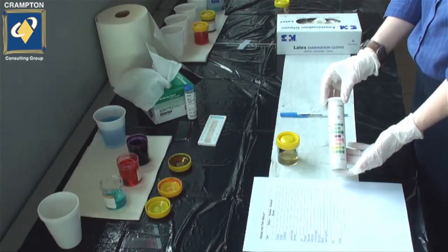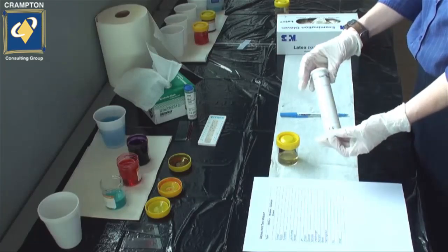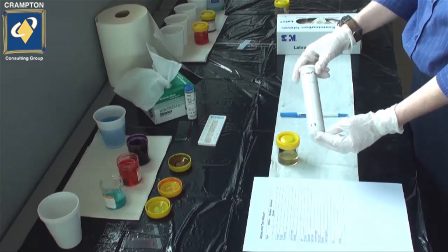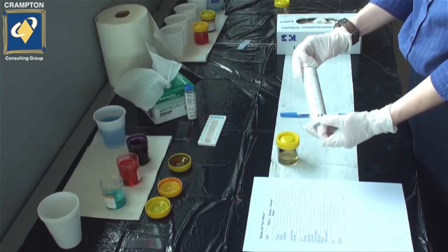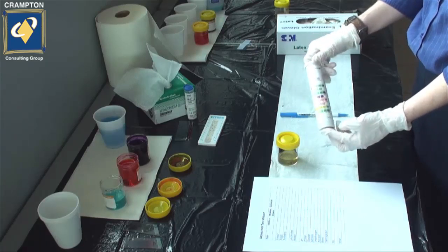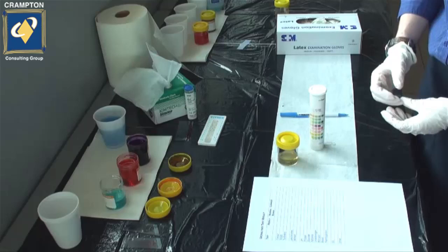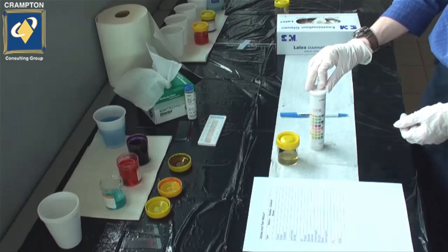Prior to commencing a dipstick test, it is important to check that they're actually in date. Check the expiry date to ensure that it is functional to use. Also check on the side as to how many seconds are required per test. Some will vary depending on the type purchased — some require 30 seconds prior to reading the result, others up to 60 seconds. Some brands have a mixture of 30 and 60 second waiting times, so it's very important to check that.